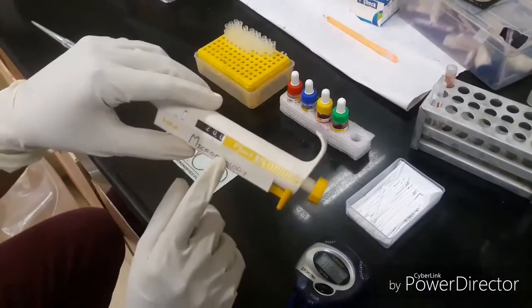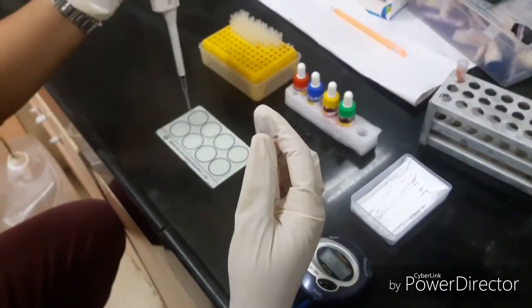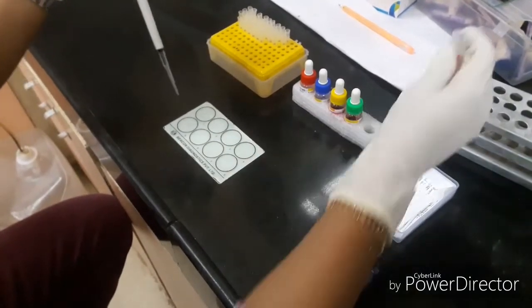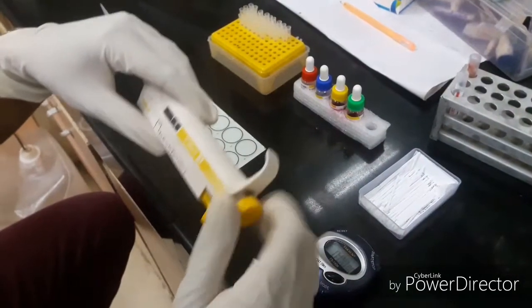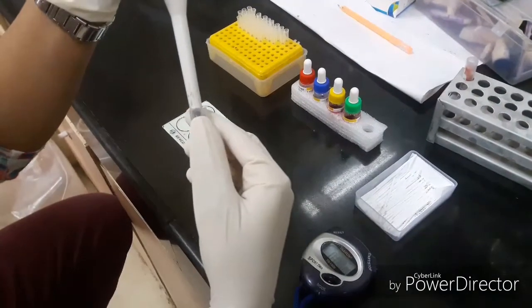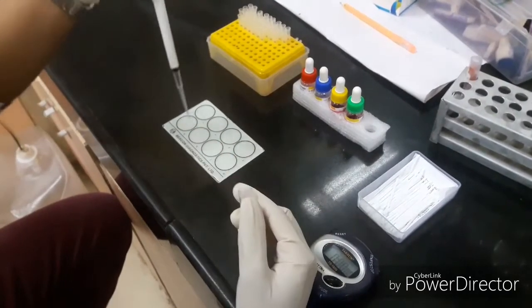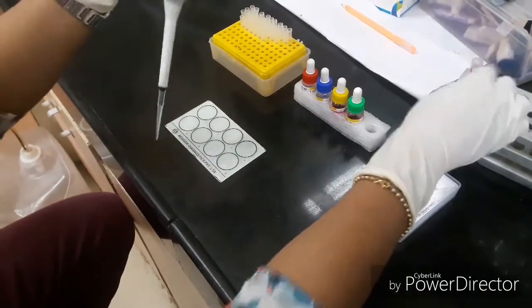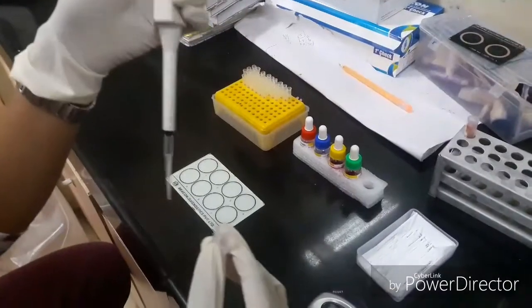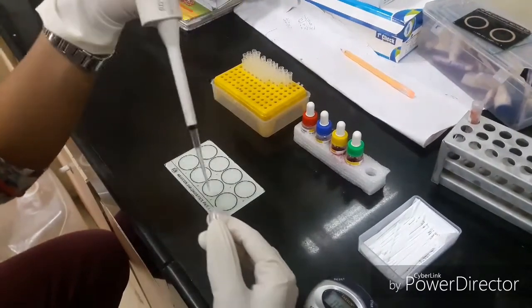The quantitative Widal test is performed for the titer. We first take 20 microliters of serum, then 10 microliters of serum, and 5 microliters of serum, and we will mix each with the respective antigen.